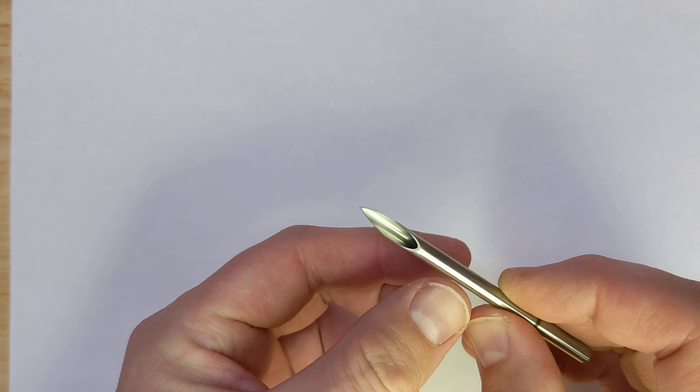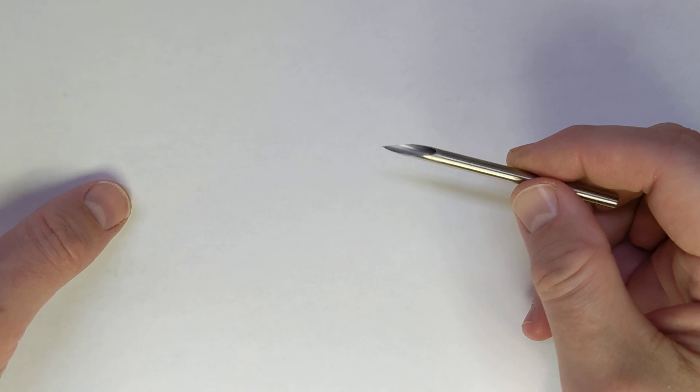This is just a quick video describing bevel technique when it comes to skin. White piece of paper representing skin.